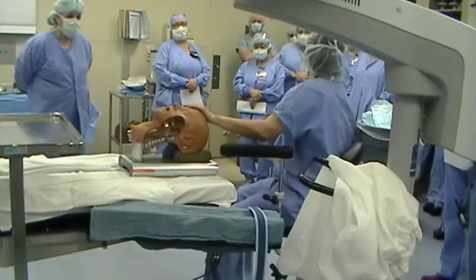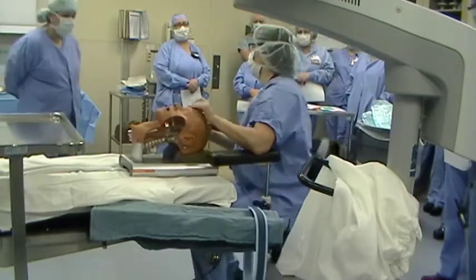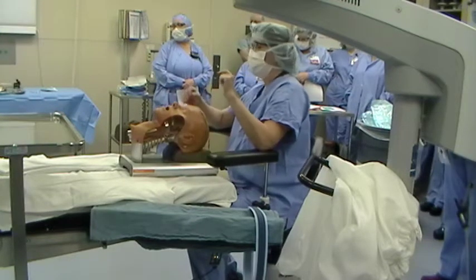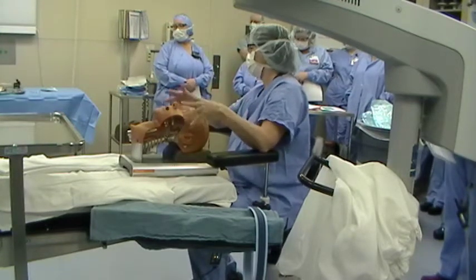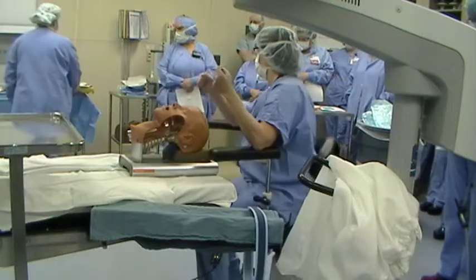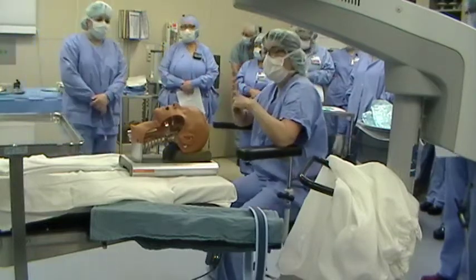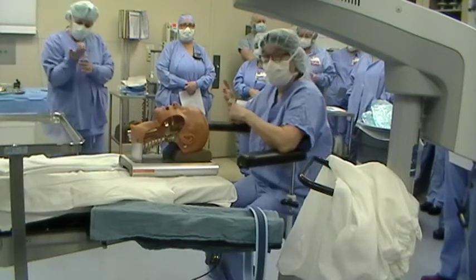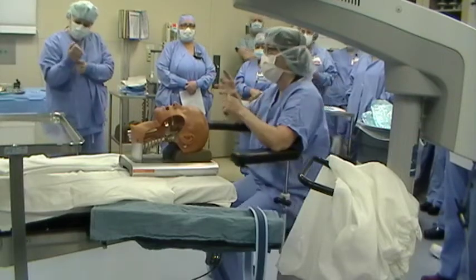This dummy is very stiff. I may not be able to get everything into position the way I would want, but he at least gives us the opportunity to kind of see what's going on. There are two kinds of laryngoscopy that I, Dr. Lane, or any of the EMTs will be doing.